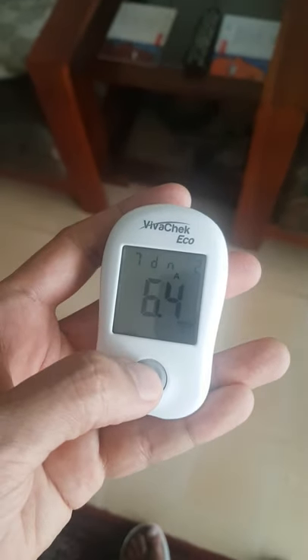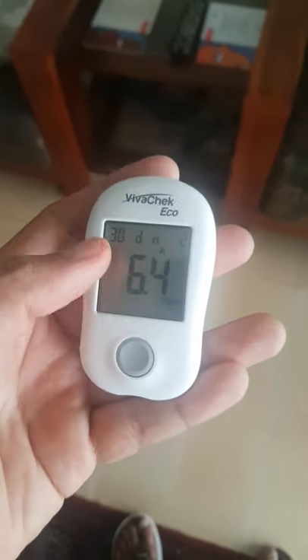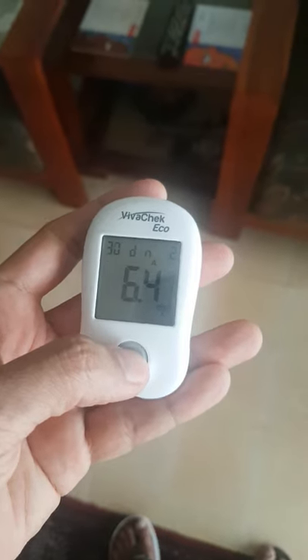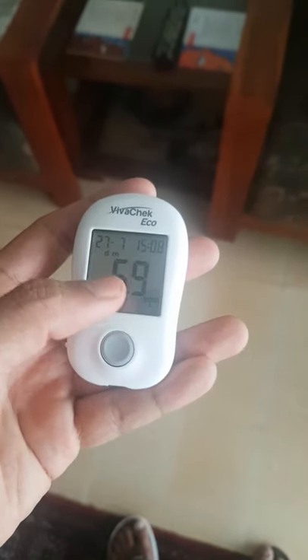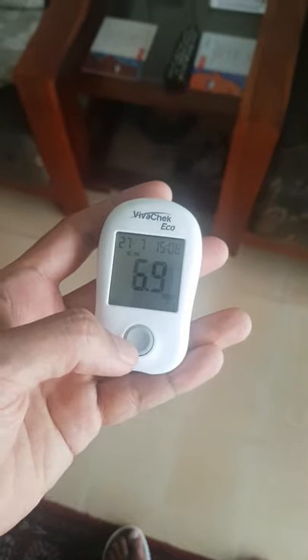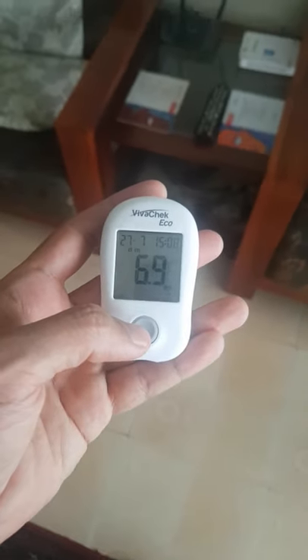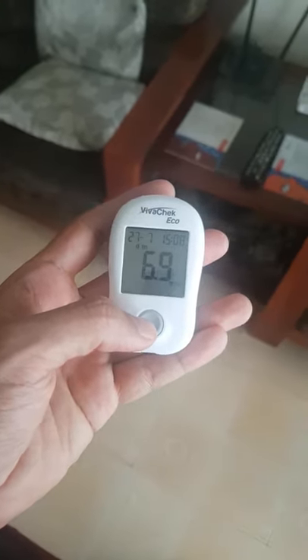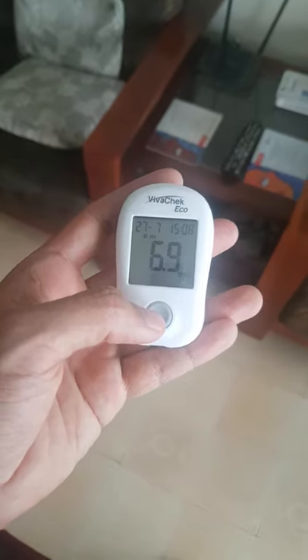We can check seven days, then 14 days, and finally one month's average. That's the last reading I'm getting. That's all you need to know about how to check diabetes through the VivaCheck Eco Diabetes Measuring Tool.